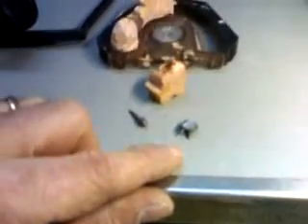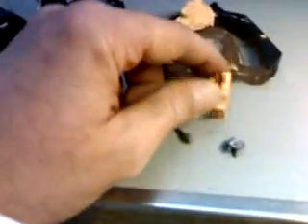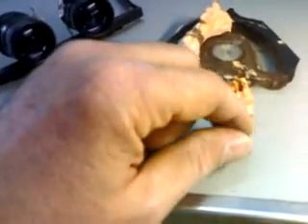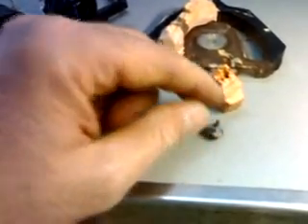Concerning this post core that must fit the model — which it did as soon as it was cut — there will be some more attention for it, because through the use of my binoculars I will have to smooth out all the marginal area, and I will look for extra imperfections that I could not see with my naked eye.